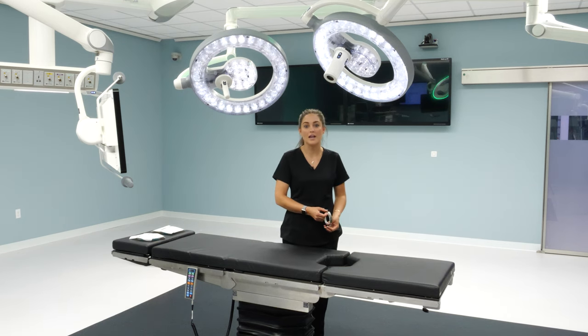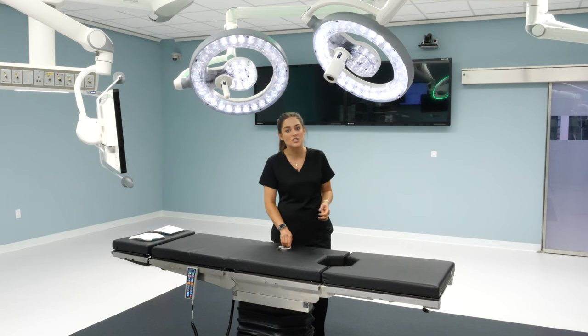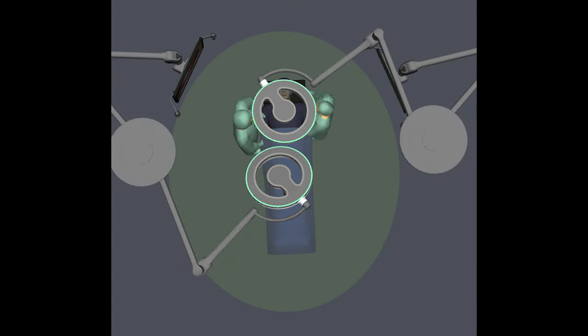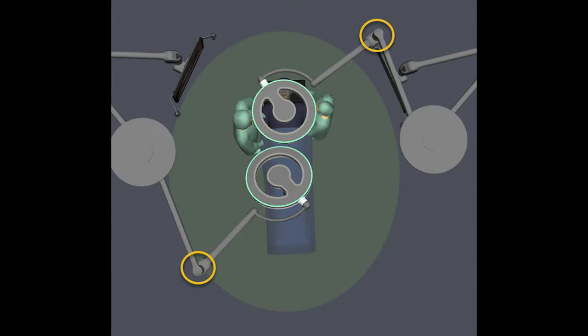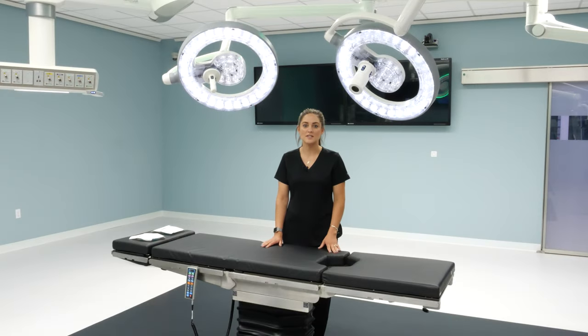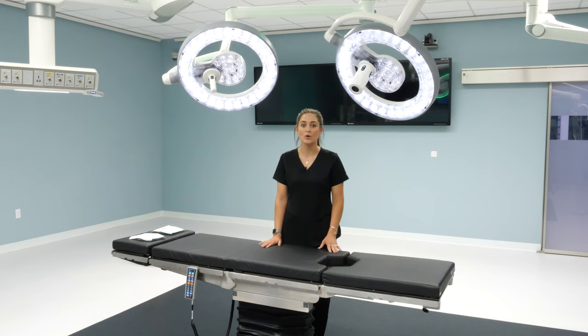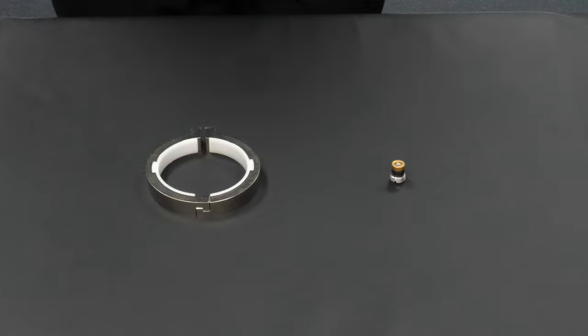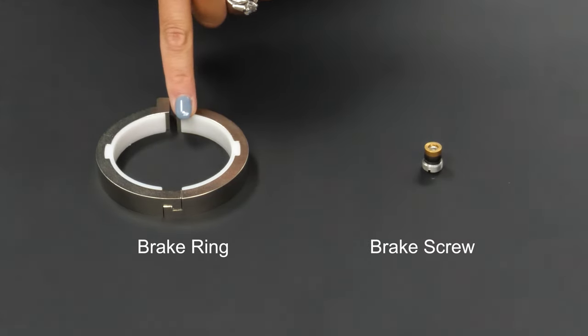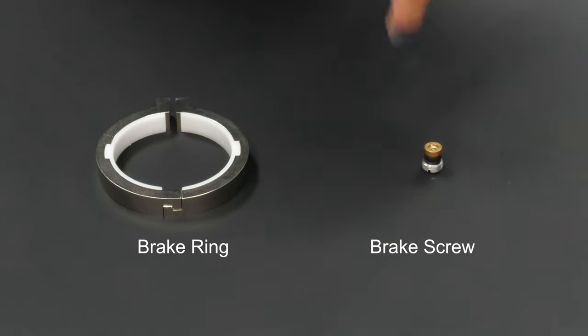One of the most important things when talking about the suspension system is the position of the arms. I always like to say keep knuckles out — the V point on the arm between the upper and lower arm you always want to position away from the sterile field. To address concerns with drift, this suspension system comes with a patented brake ring instead of a brake screw. The surface coverage area is significantly more on the brake ring versus the brake screw, and Steris has found that no additional adjustments have been needed for five-plus years after initial install.